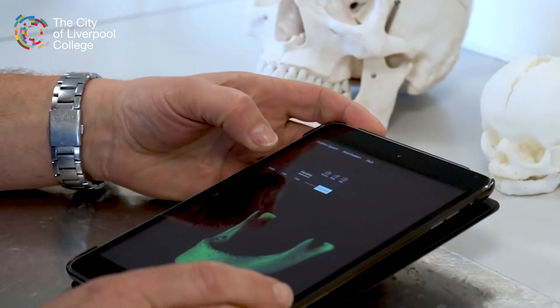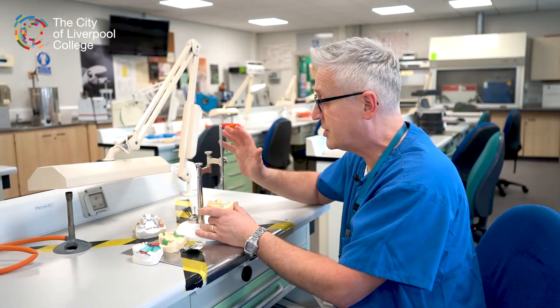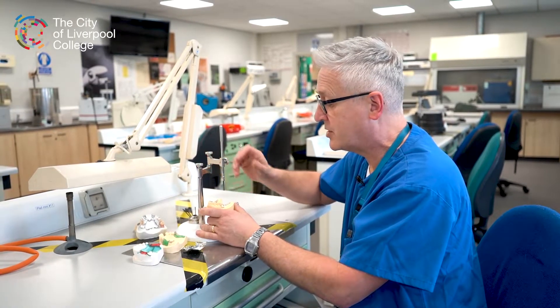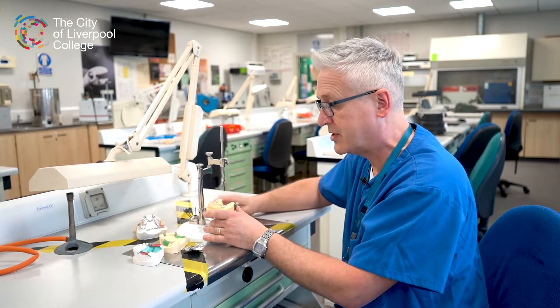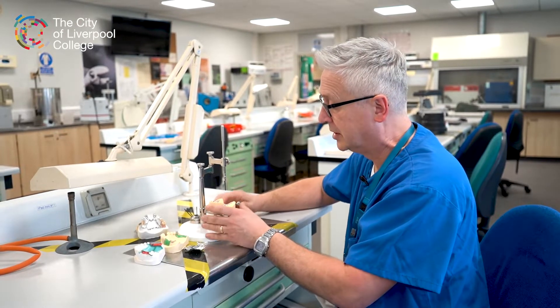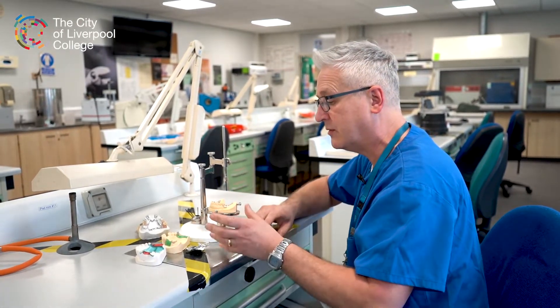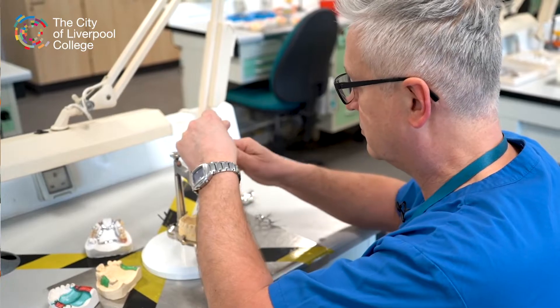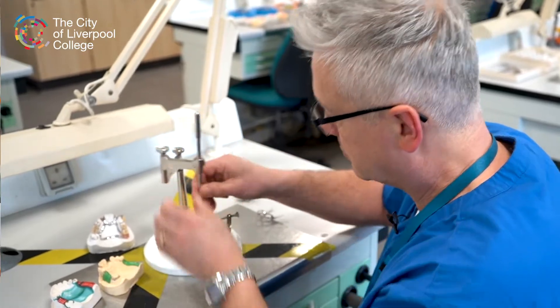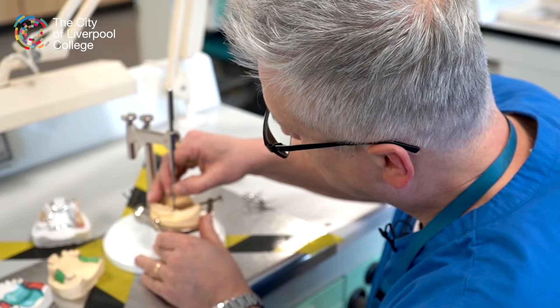For partial prosthetics we'll learn to use the model surveyor so we can analyse paths of insertion and paths of withdrawal. We can use traditional techniques like the lost wax technique, which is still widely used, and then we can also start to blend that with digital technology.